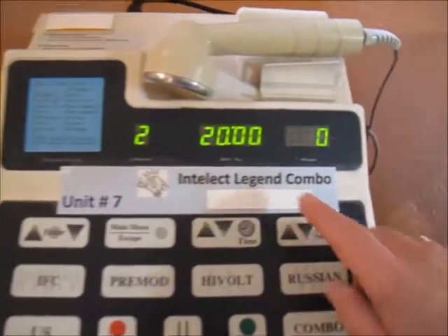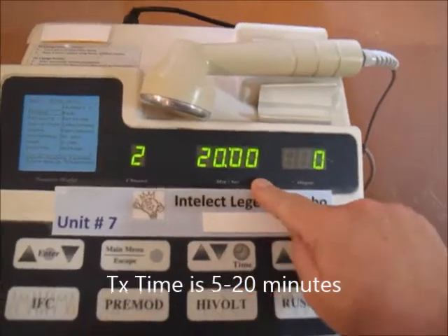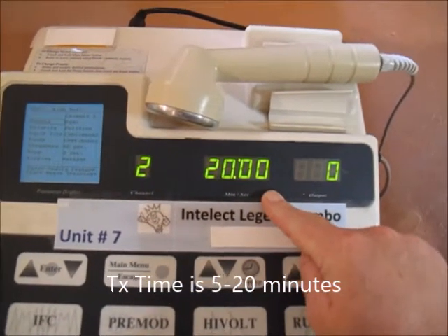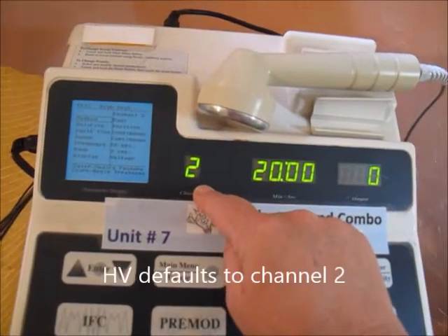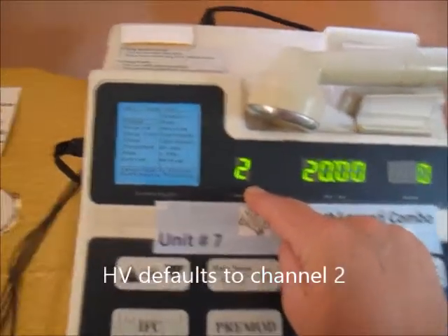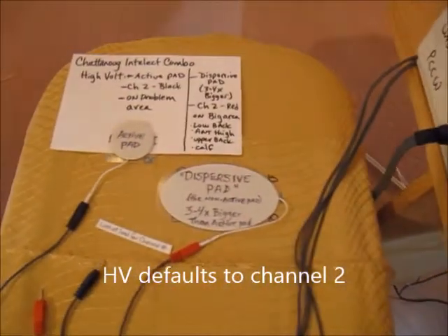The default treatment time is 20 minutes. Treatment time for HiVolt can be anywhere from 5 to 20 minutes. It automatically defaults to channel number 2, which is going to be important in how we set up our pads.